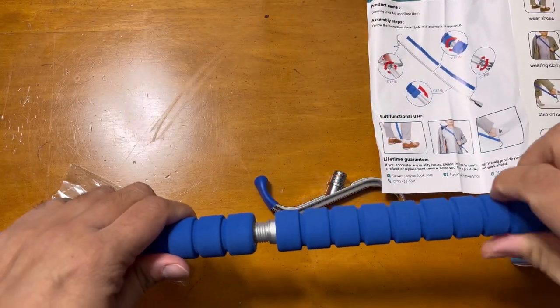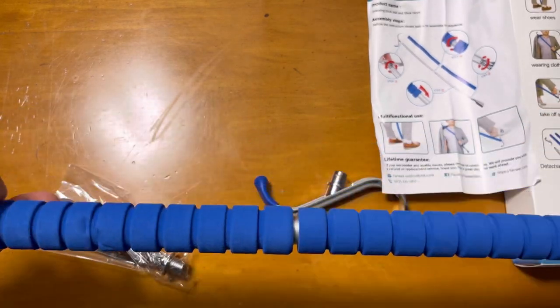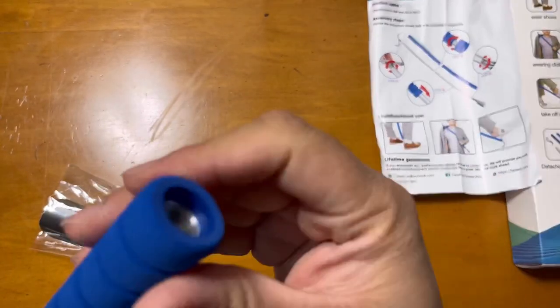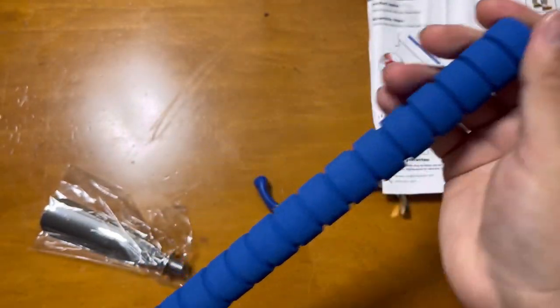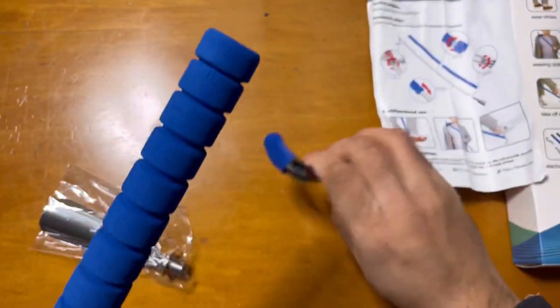There are two sides to this thing. For increasing the length, you can combine both pieces. There's a cushion on the top that will help you hold it comfortably.